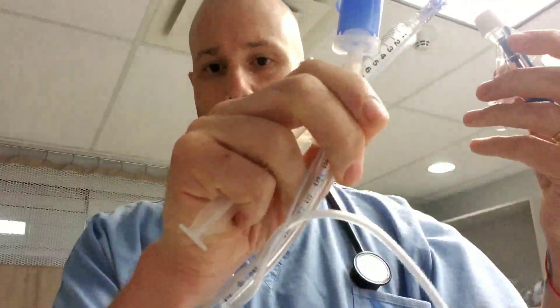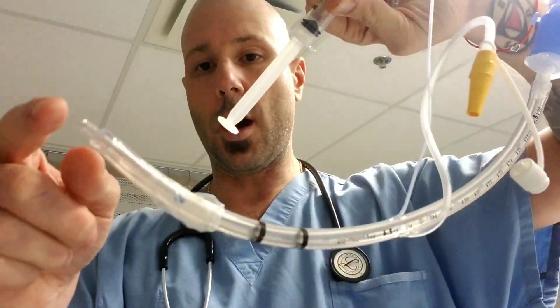So you've got the centimeters on the inline suction — you're going to put the 27 centimeters of the inline suction lined up with the 26 centimeters on the ET tube, putting it one centimeter past the distal tip. Then — obviously pretend this is intubated, you don't have to hold the ET tube — you're going to apply continuous suction, and while you apply continuous suction, you're going to deflate the cuff so that any phlegm that slides down that wasn't evacuated from the evac will be caught.